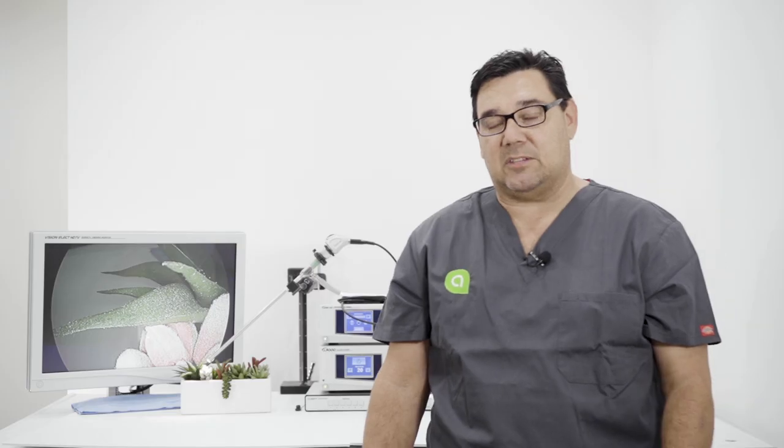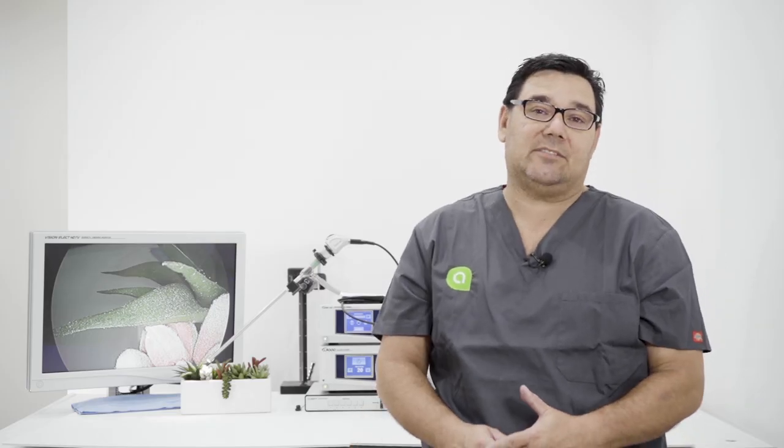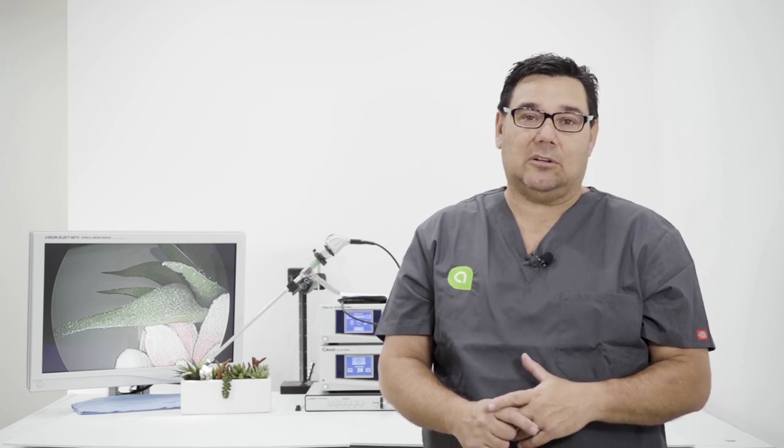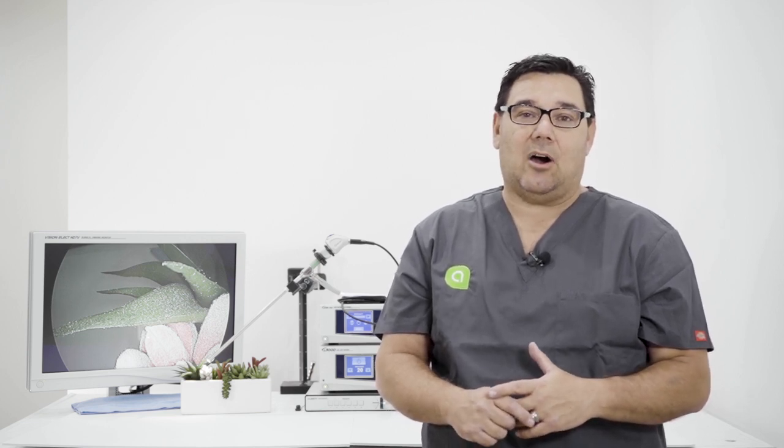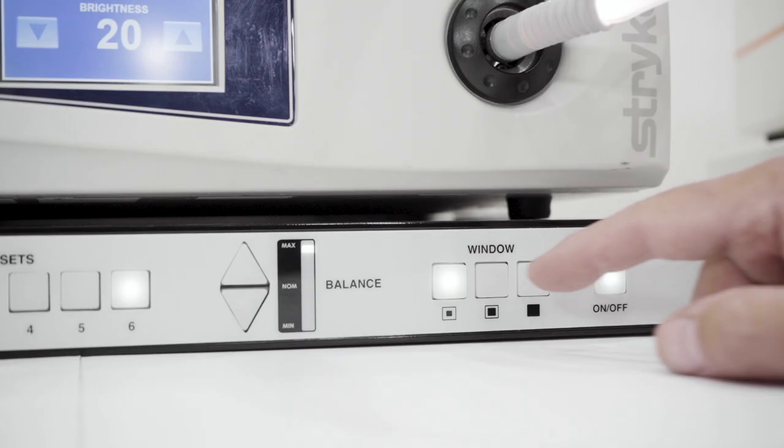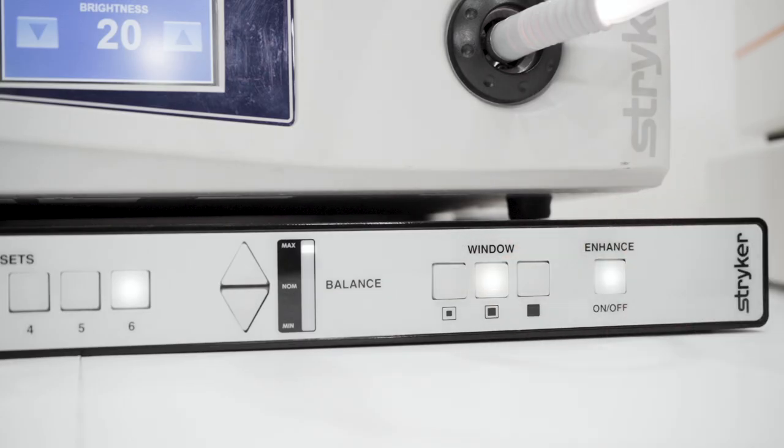The Clarity system is designed to enhance contrast, color, saturation, and clarity of your video system. The system is really easy to use.